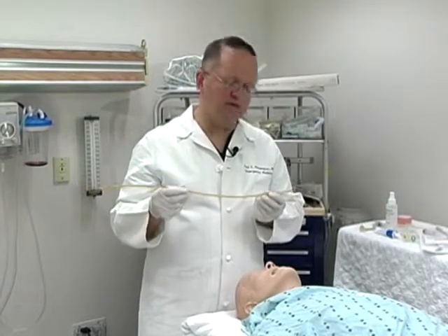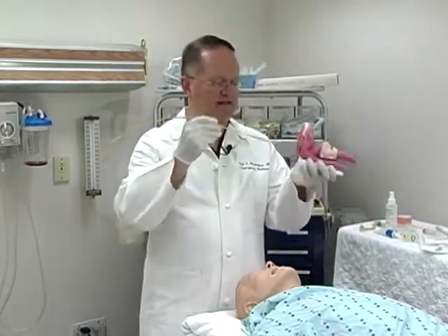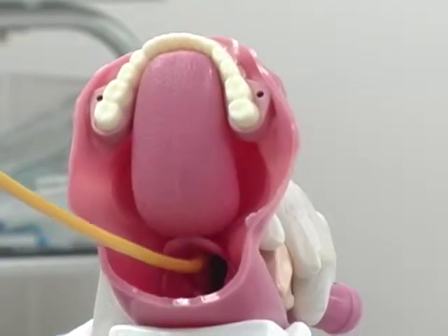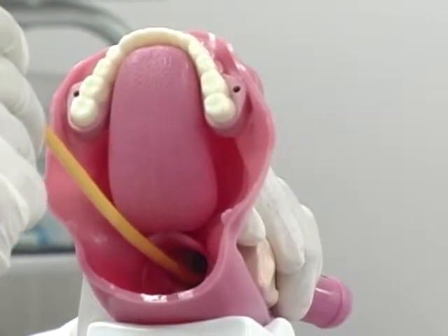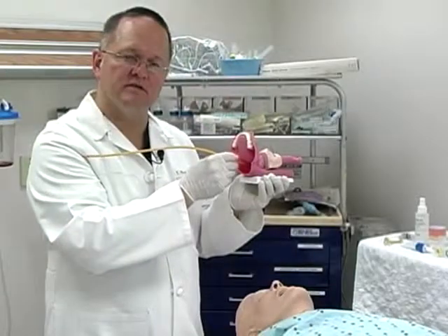The basic principle uses a plastic-type device with an upward curve on the tip as shown here. The device is then fed into the posterior pharynx and tracks along the epiglottis and is inserted into the trachea. Once the device is inserted into the trachea, one can be assured of this by feeling the clicking of the tracheal rings that occur as the tube is advanced.